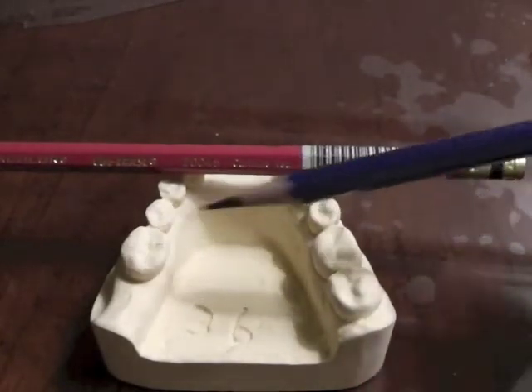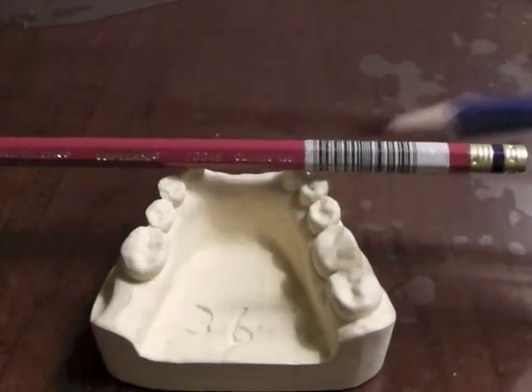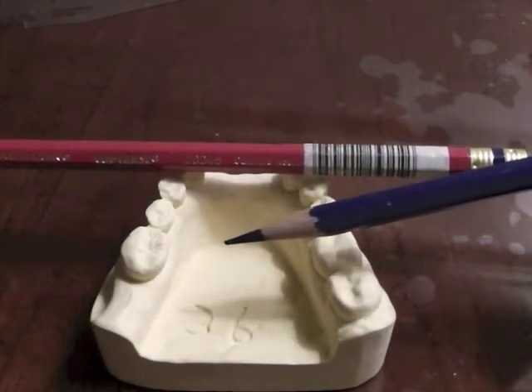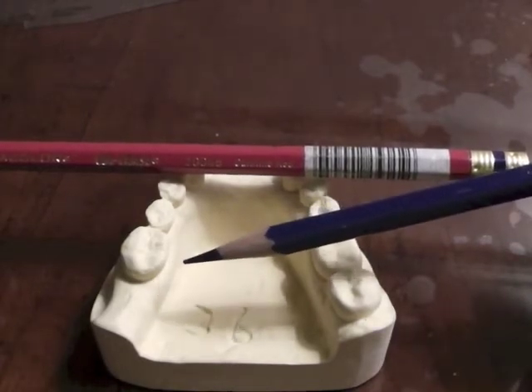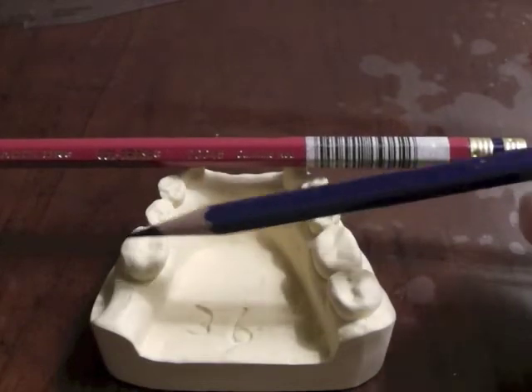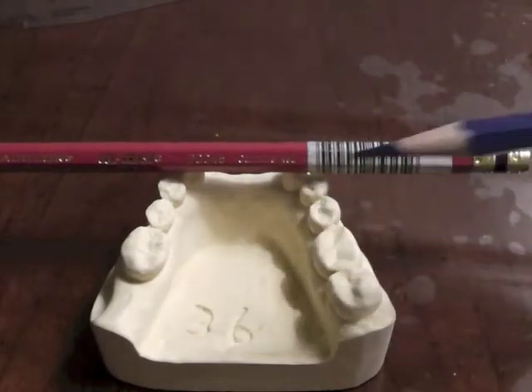If we do the first molars, it would be more symmetrical. But a lot of times on the mandibular, our molars lean to the lingual, and we're going to utilize the surface that has the greatest undercut because we would have to alter our tooth less when we try to put an arm in that direction. So we're going to look at buccal on the molar, but if we don't have that, we'll look for lingual on the molar.